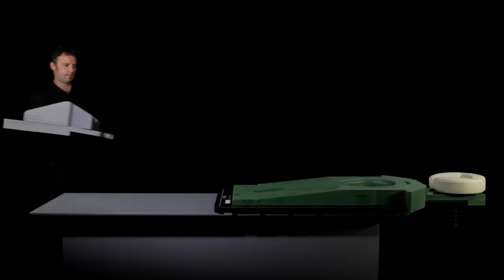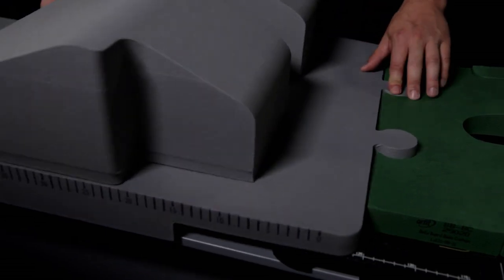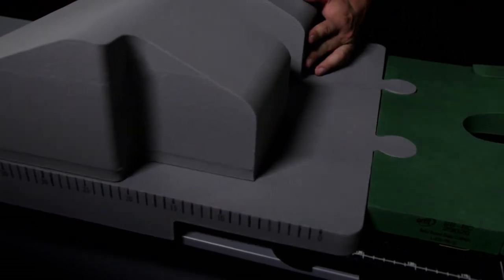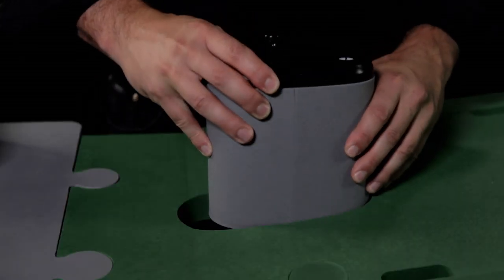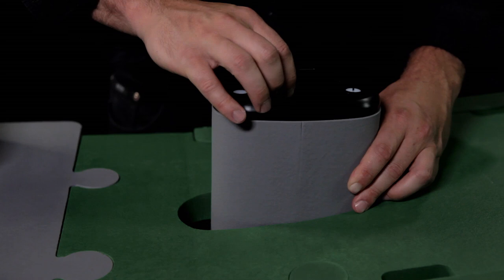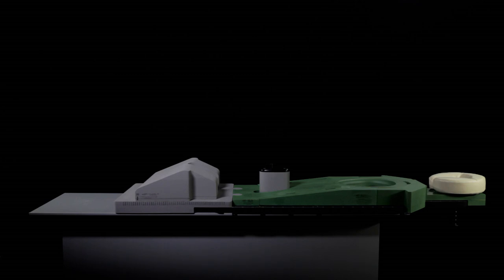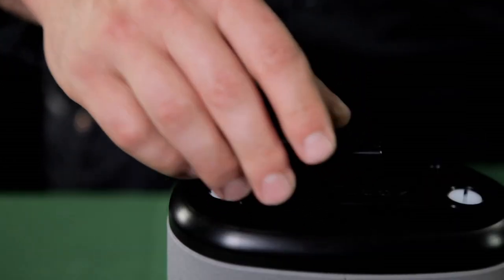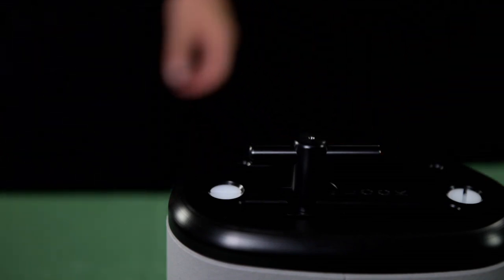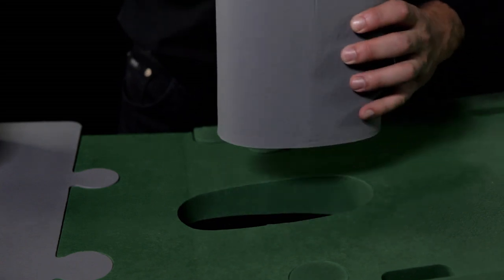Then fit the two grey cushions to support the ankles onto the green base cushion. Now the leg separator can be fitted to the base plate using the small hole in the base cushion. Although we only recommend this is done with the patient already lying on the cushion. Fix the leg separator to the base plate by turning the handle a quarter turn. The leg separator can be placed in a second position by rotating it 180 degrees.